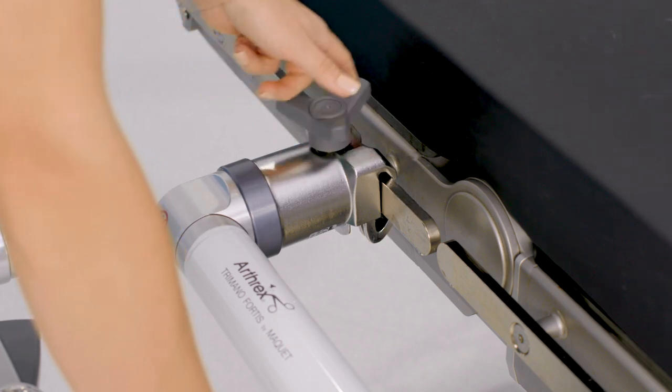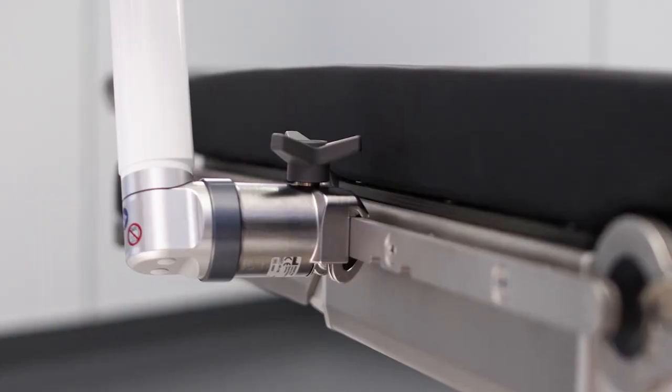The clamp will auto-adapt to a variety of OR rail sizes. Check proper seating.